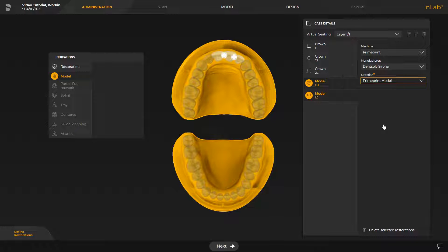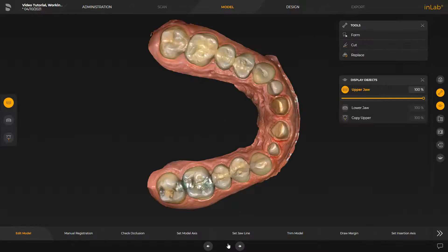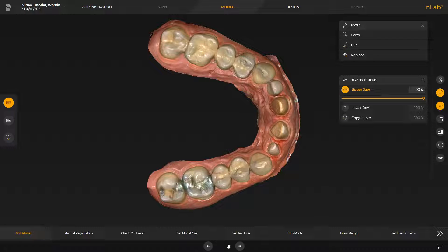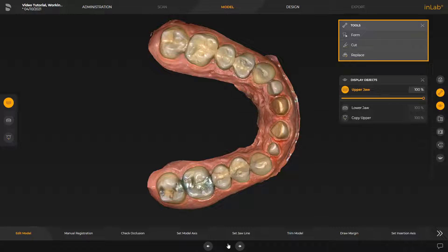Since we are working with intraoral scan data, this phase is grayed out and we have the option to only view the image catalog scan data. In our case, we proceed directly with the Model phase. Now, we are inside the Edit Model step and with the different tools, we could edit the model data if desired.